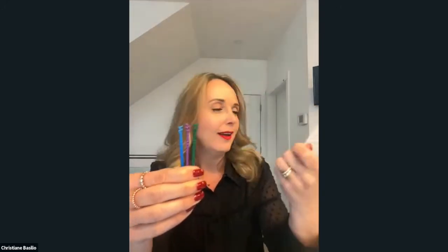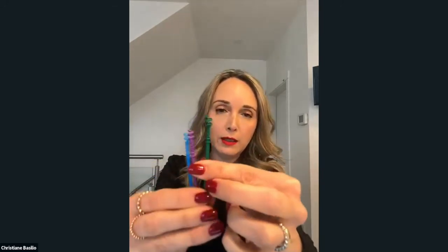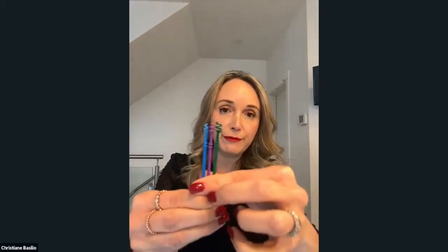In the box — I forgot to mention — it comes with instructions in all languages. I was just learning a few details about that before this webinar. But it has these three different sizes of the helix, and you can see it also has markers on here: the proximal and the distal marker. Those will also be different between the three sizes.